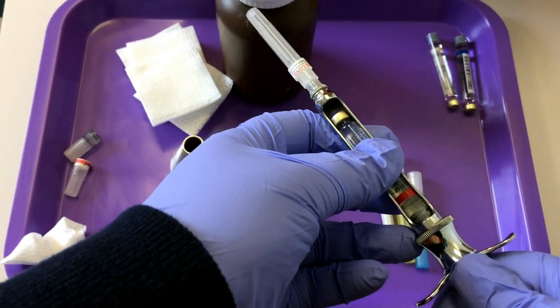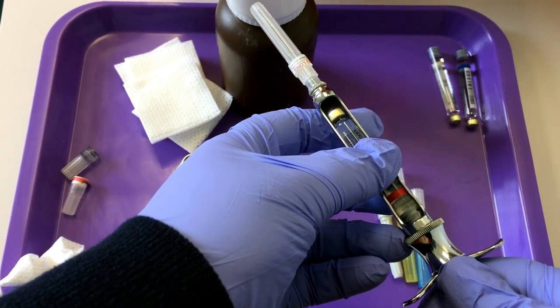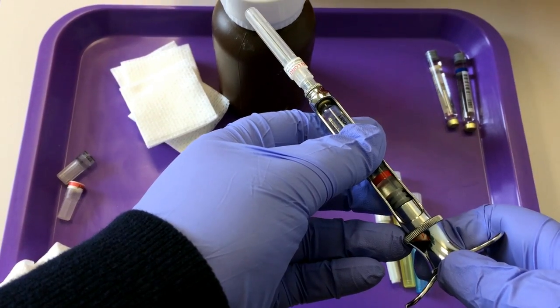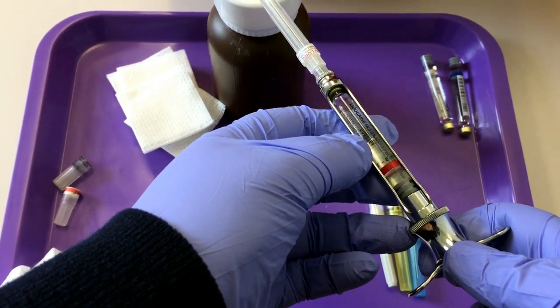Lay it in place and then keep your thumb on top of it. Then slowly release the piston. As the carpule slides, the stylus will puncture the rubber diaphragm.